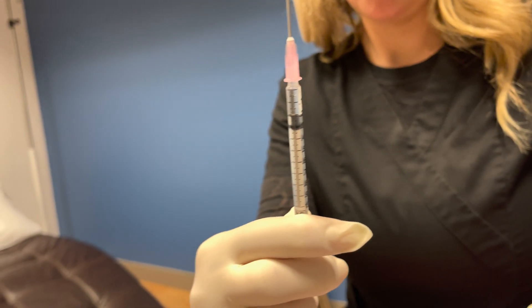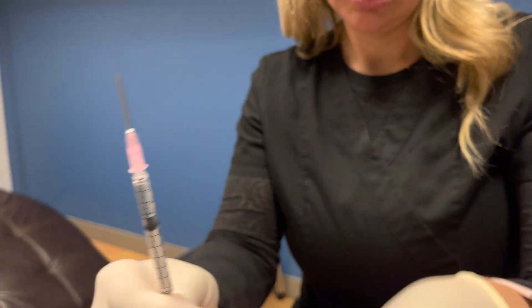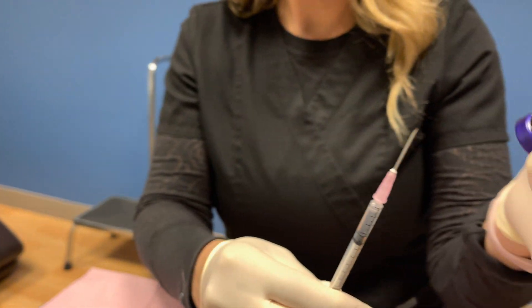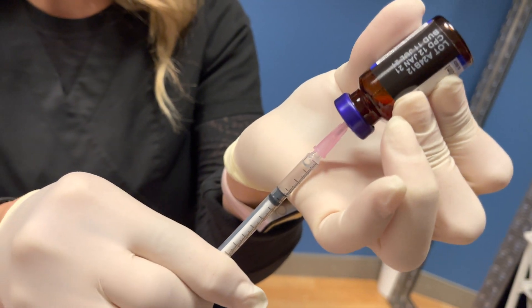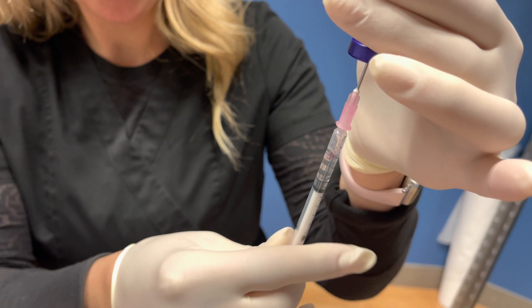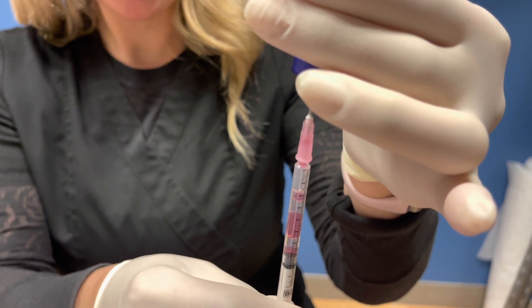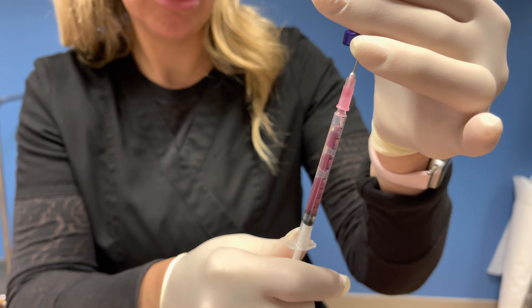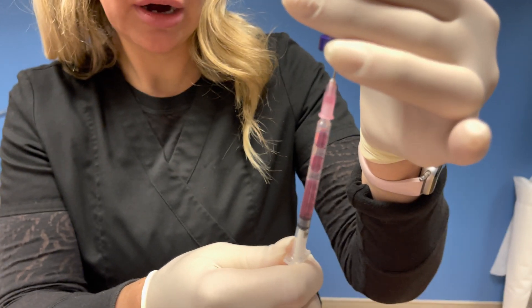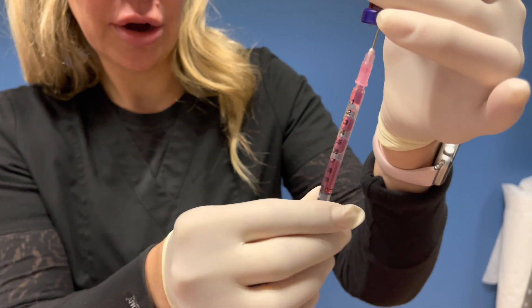We're going to remove it. Now we're going to put a little bit of air in the top, so that way we don't get the B12 and the test mixed. We're going to go into the little circle. And then we're going to pull the rest of the way with B12. Now we can actually push up the air and then pull down. Push up air, pull down. And then you're at your 1ml.